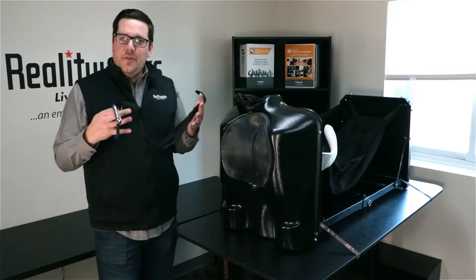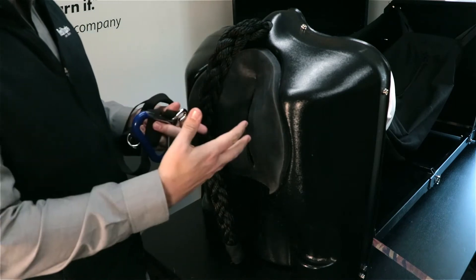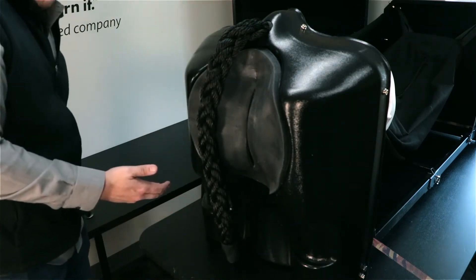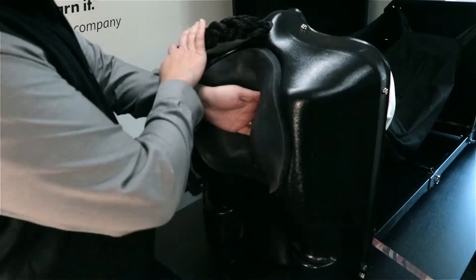When pulling, our product allows you to use calf straps and a pulling handle, or you can do it freehand without any of those. We also have a spot so you can use a calf jack. The simulator is anatomically correct — you move the tail out of the way and move on in.